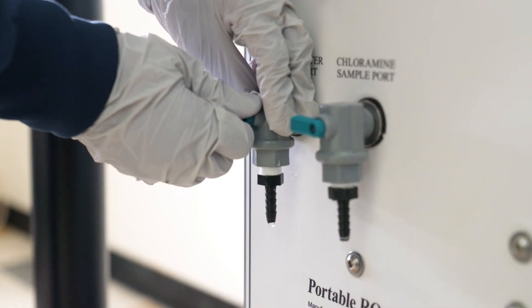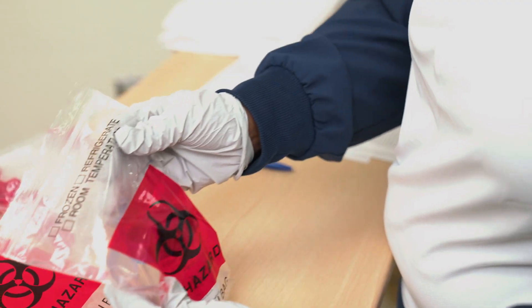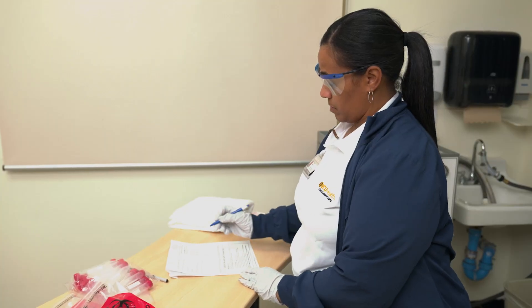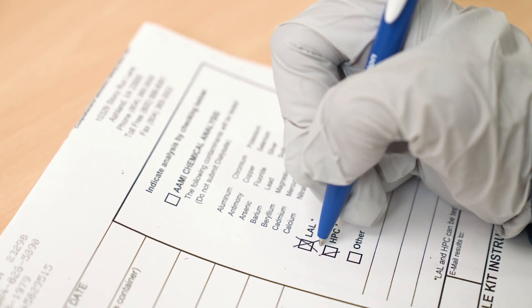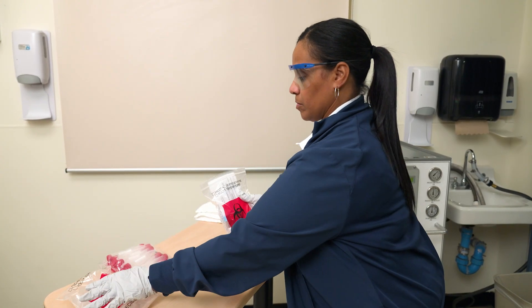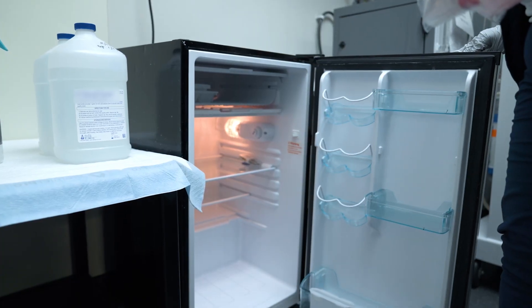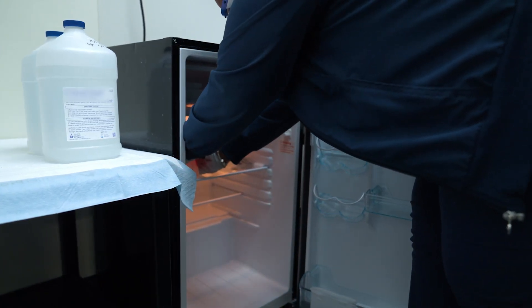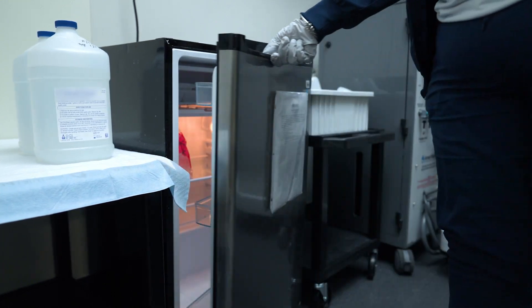Turn off the nozzle. Place both samples into a biohazard bag and place them on a small bag of ice. Follow your institution's and laboratory's protocols for completing forms and sending specimens for testing. Place your completed forms, test samples in the biohazard bag, and the bag of ice in the fridge. These samples should be assayed within one to two hours of collection, or refrigerated immediately in a temperature-controlled and monitored refrigerator and assayed within 24 hours.